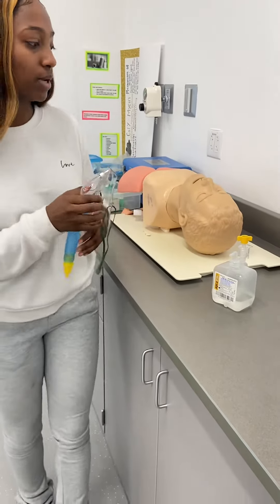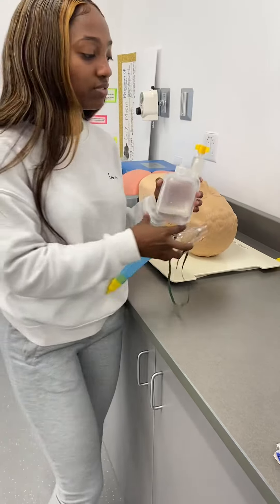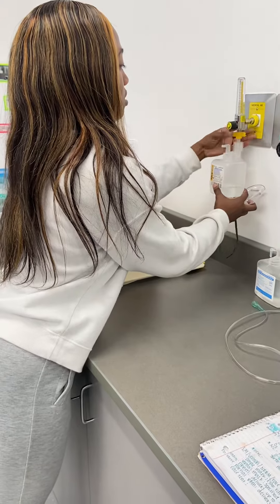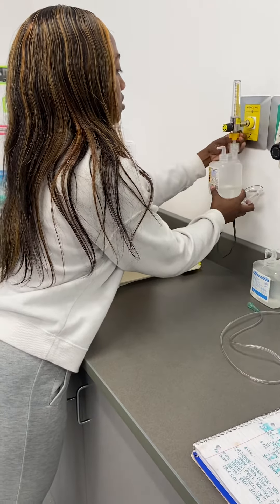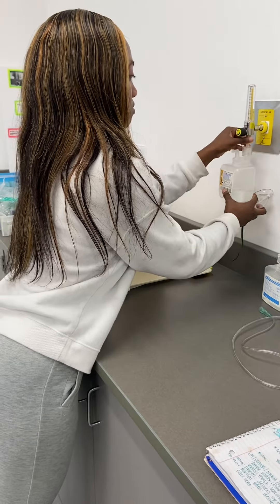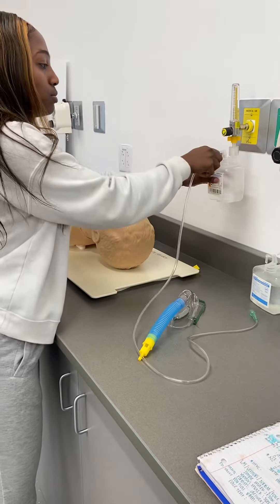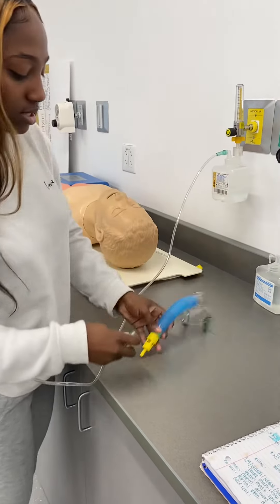Since it's 6 liters per minute, you would need to hook up the humidification device. Once the humidification device is hooked up, you will hook up your tube to connect the flow to the mask.